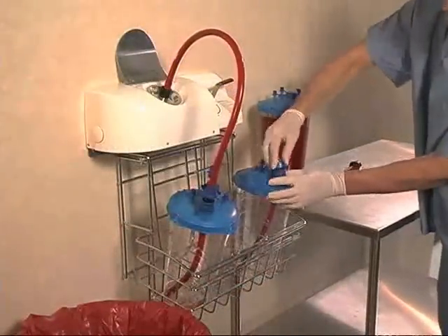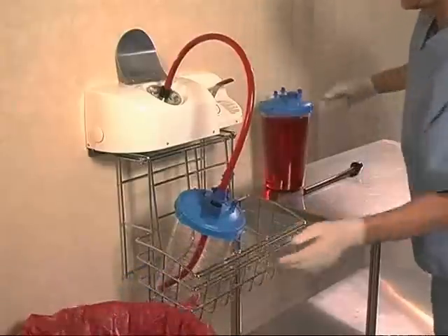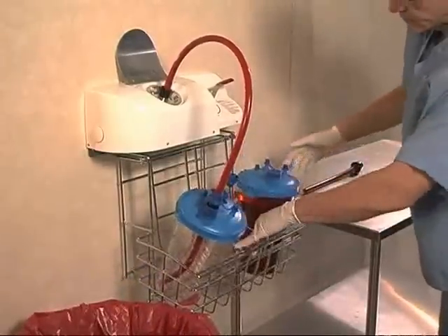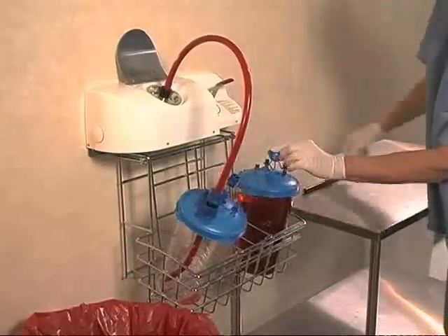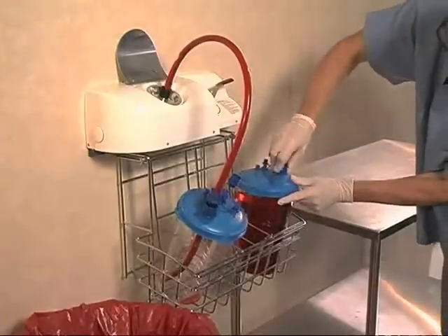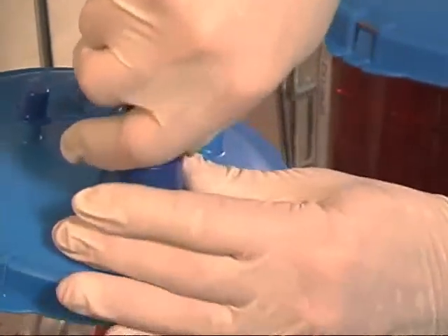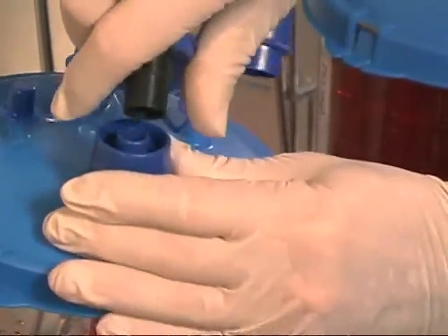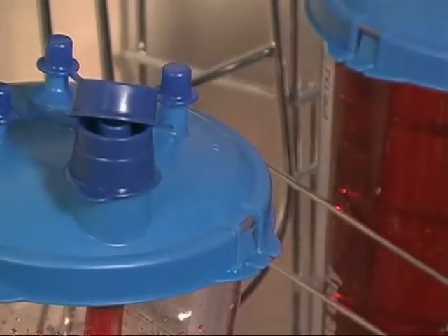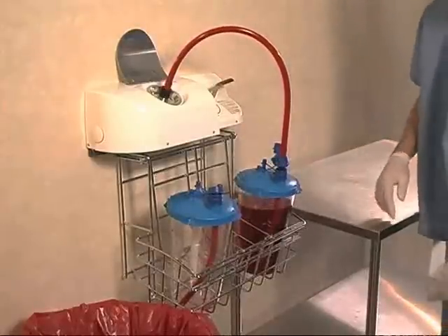While the first canister is emptying, the healthcare professional discards the previous canister, loads the subsequent canister into the basket, and inserts the dip tube. When the canister is empty, he disconnects the pump tube from the empty canister, lightly tapping the end of the tube to ensure there are no drips. The pump tube is then attached to the next canister.